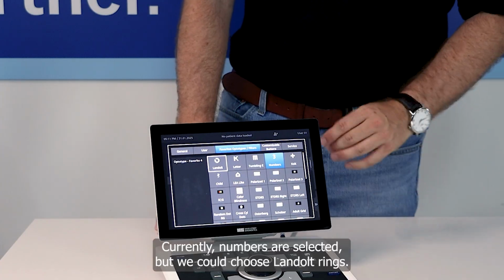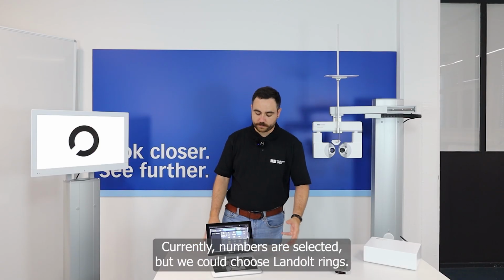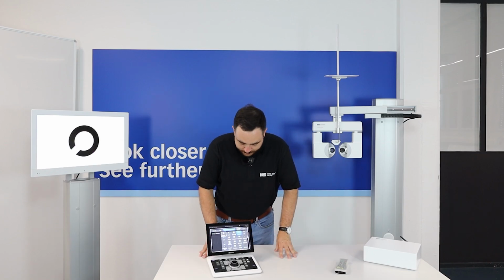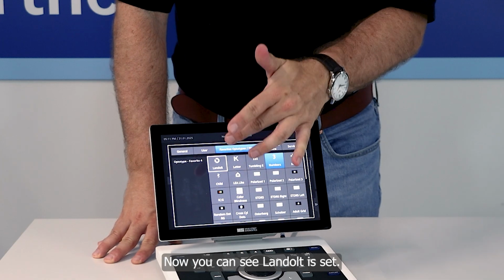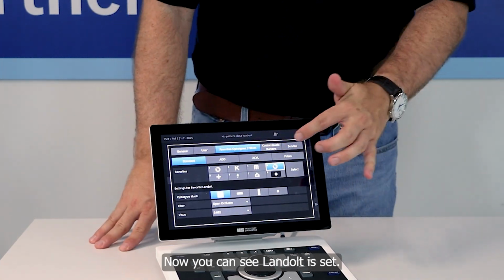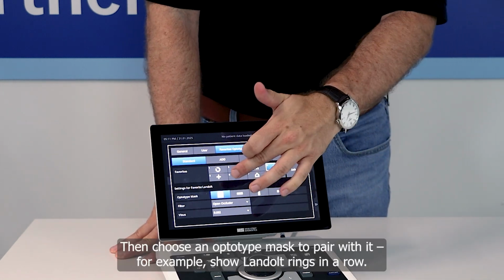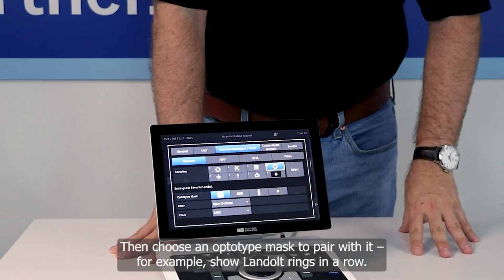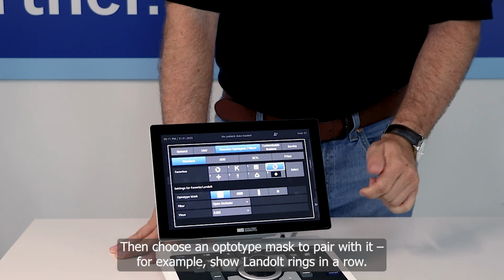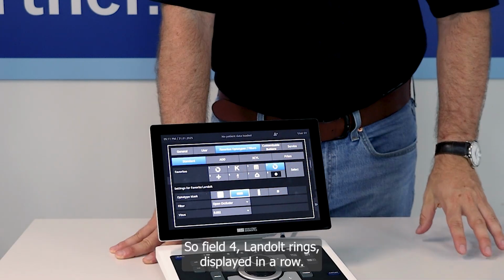Now I can see currently it's a number optotypes chosen, but now I could say, hey, let's have here Landolt. Now you can see, now you have the Landolt ring there. Then you can choose here an optotype mask to it. So I could say number 4, the Landolt rings should be shown in a row.